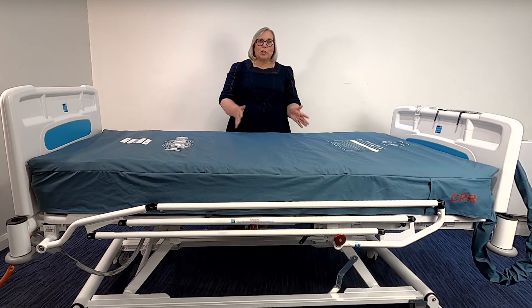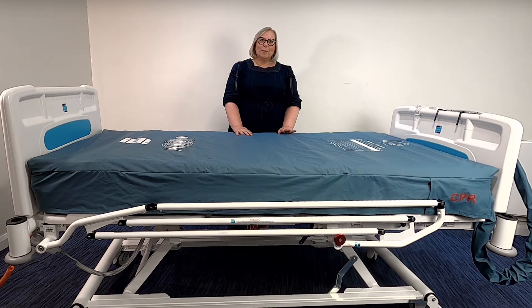The risk assessment should include but is not limited to entrapment, patient falls, and patients who have reduced capacity or who may be agitated and/or restless. The maximum user weight for the mattress is 190 kilograms, or roughly 30 stone. However, this does include any bedding and accessories that may be used with the mattress. It is suitable for patients up to a very high risk and patients that may have a category 4 pressure ulcer.